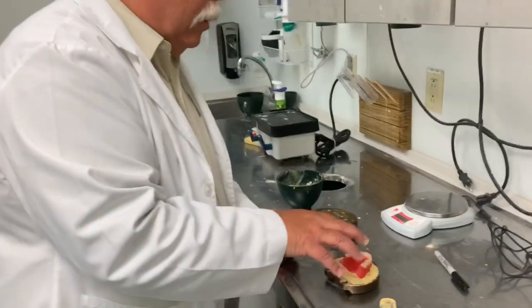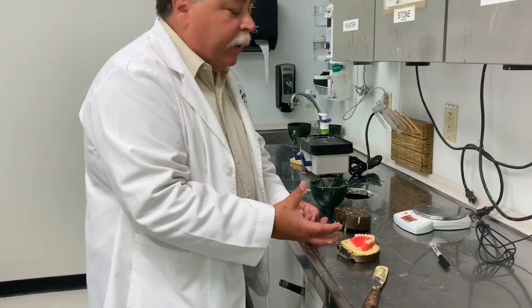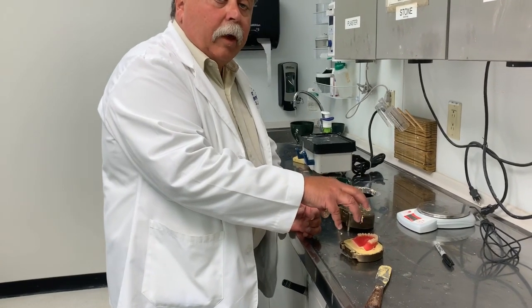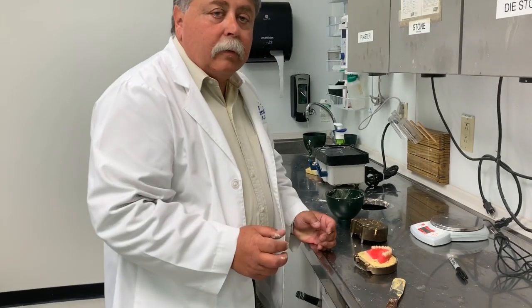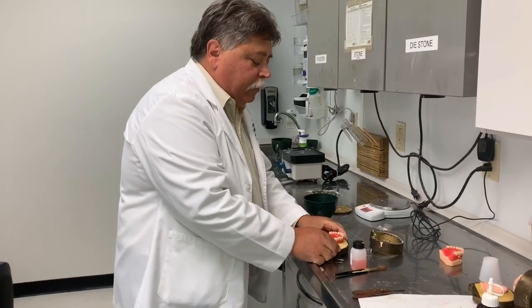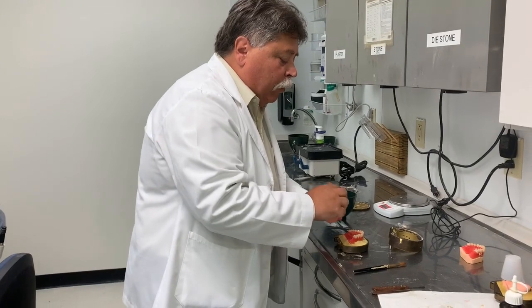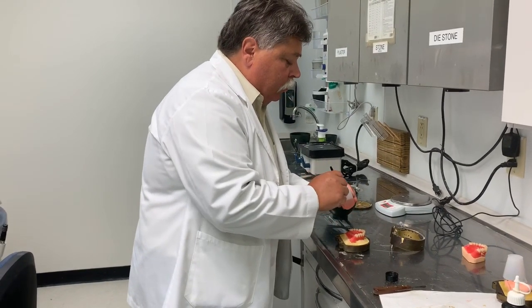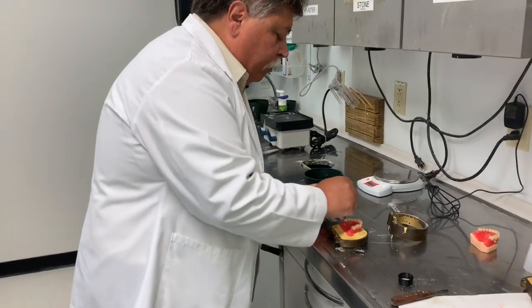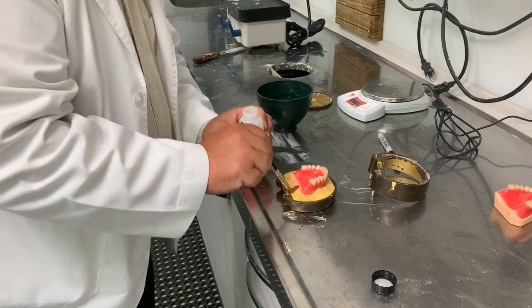The first half is we are setting the model, the wax up in the teeth, all in the bottom half of the flask. We will do a second pour, which will end up holding the teeth in place, and we're going to remove all the wax. All right. Denture is now set up, and we need to paint some separator on here because we're going to pour another layer of gypsum on top of it. So we want the two layers not to stick together. So I'm going to take a little bit of our separating fluid and just paint it on. Wherever I paint this on, the second pour of gypsum will not stick to it.